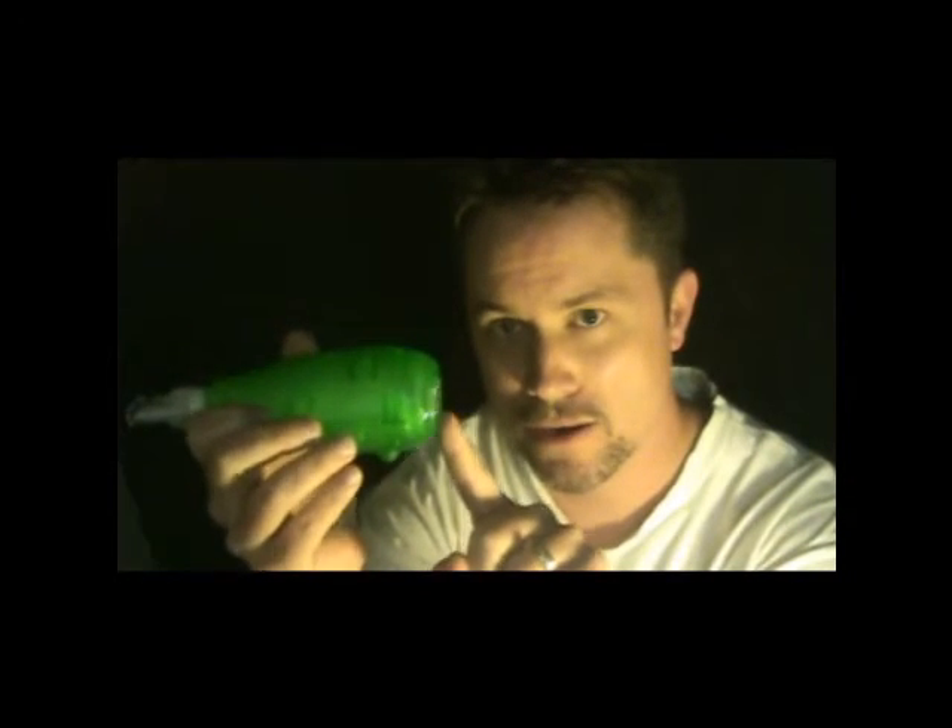You can also attach your nebulizer to it and take your breathing treatment at the same time. You just stick the other end in there and breathe in like you would taking a regular nebulizer treatment. So you get three effects: your nebulizer dilates those constricted airways open; the positive expiratory pressure stents them open and allows you to exhale all the air out so you don't trap it; and it also allows you to move those sticky secretions up and out.